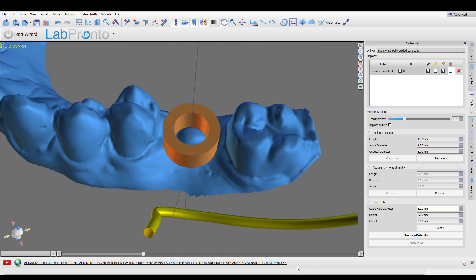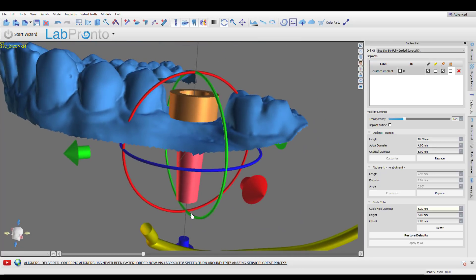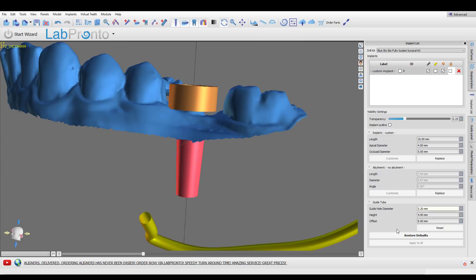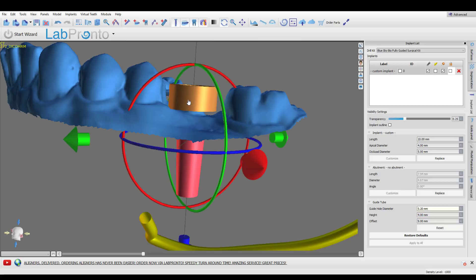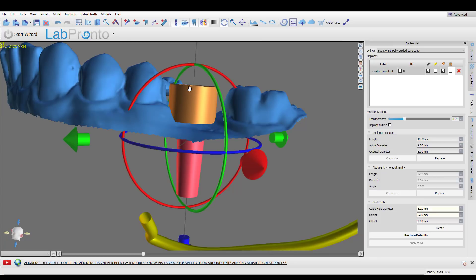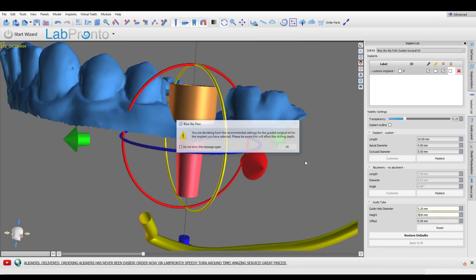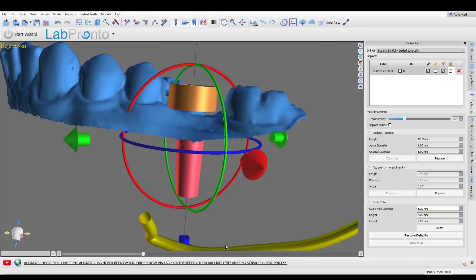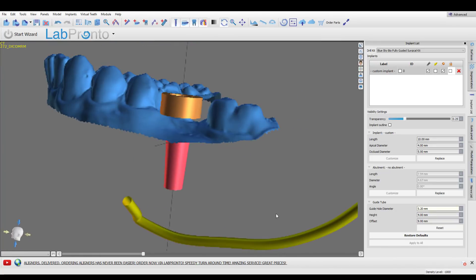The height of the guide sleeve is really just dependent on what you're sticking into it — typically four is fine. You'll see that if I change it to something like six, it simply keeps the coronal position of the platform the same and just varies the height. If the keys you're using only have a vertical height of three, there's not much point going larger than three, so in this case let's go with 4 millimeters for the height of the tube.